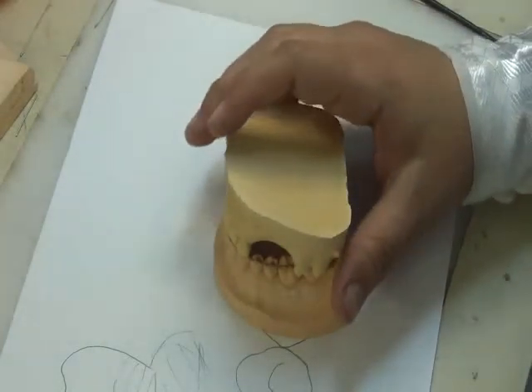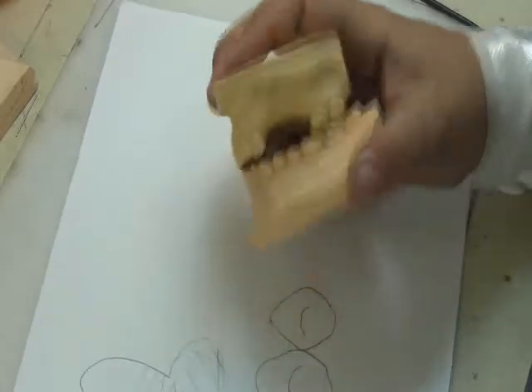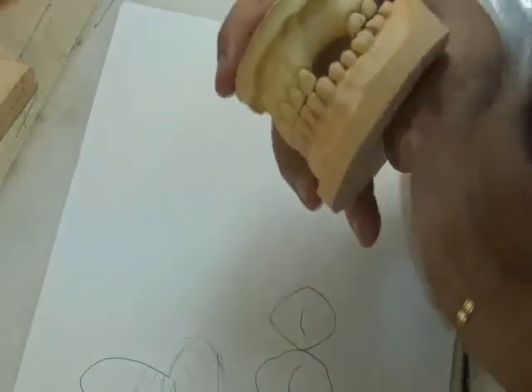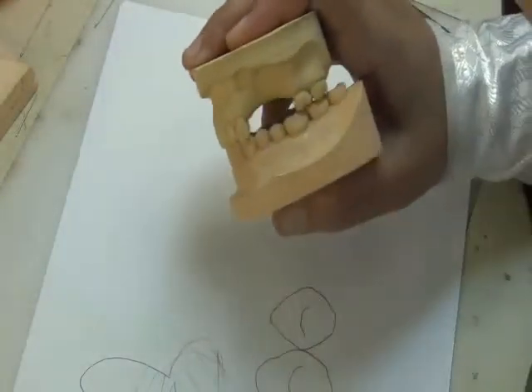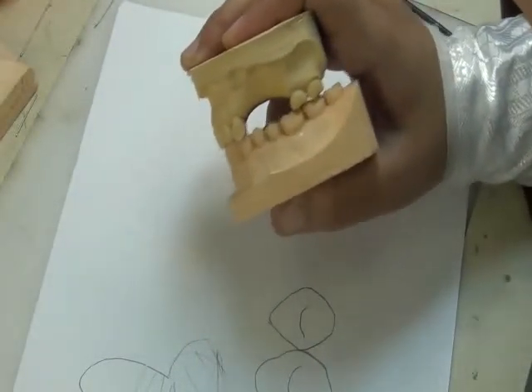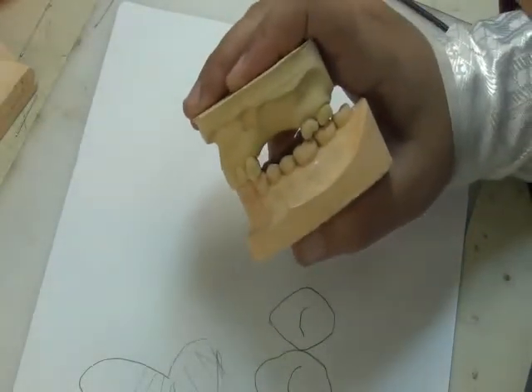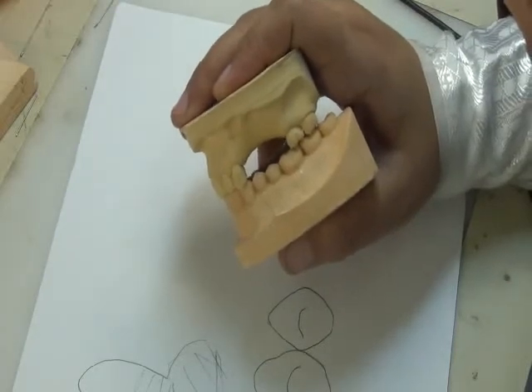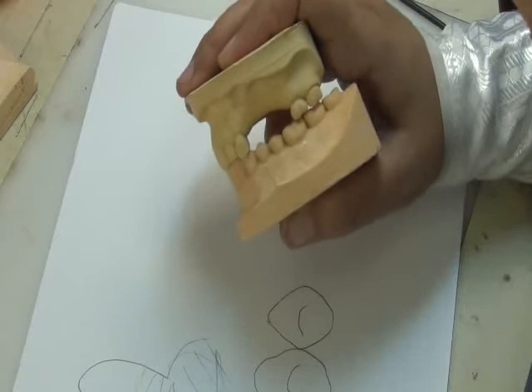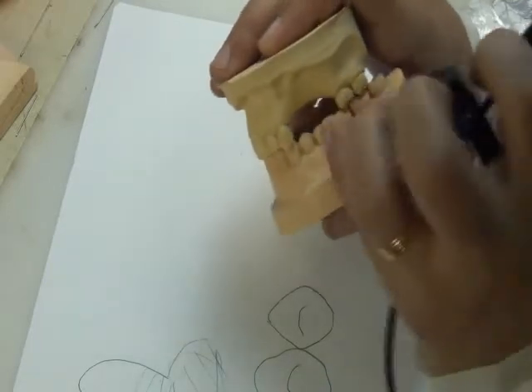We don't want this. So the first case scenario is a bounded saddle with the opposing arch, with the occlusal stops mesial and distal to the saddle area. We have occlusal stops there. And we have the lower occlusal table uniform. So we simply set according to the lower. It will help us and guide us. The other case scenario, bounded saddle, but the lower occlusal table is not uniform. Maybe this tooth is over-erupted.